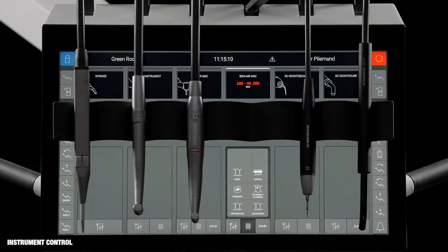Each instrument has a control window for setting up the instrument and a display for monitoring data. A unique feature of ExoFlow is the option to work with instrument presets where all instrument settings are optimised for performing one specific task. Each user may work with the standard presets that come with the unit or create his or her own presets.